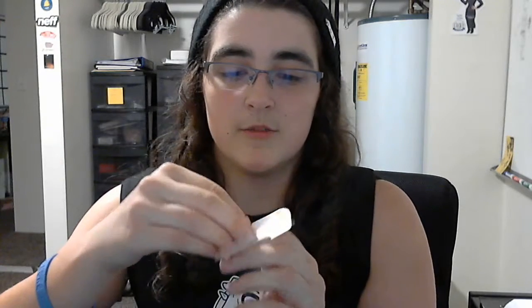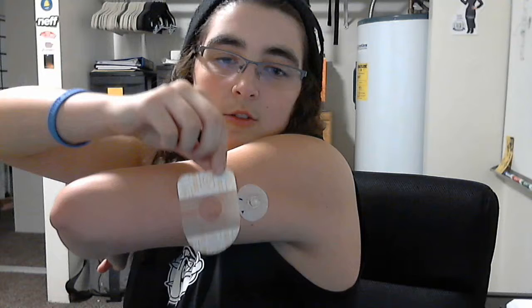The final step is just to fill the cannula — and so now that's filling up this part with some insulin. Then the final part is the IV3000 tape — it's wonderful, designed for these sites. I just remove the back adhesive cover first, make sure everything is connected properly, cover that up, and push it down. It's a little bit easier to see in a mirror. Then I pull off the two remaining covers and push that down, and slowly remove the backing. And I have a nice little layer of tape there.